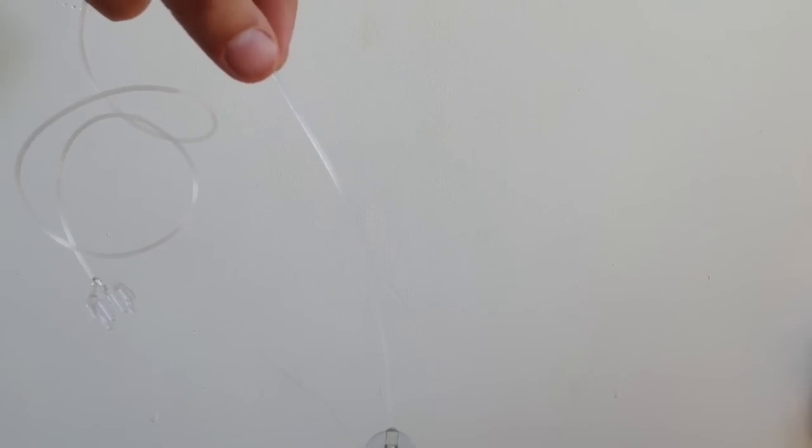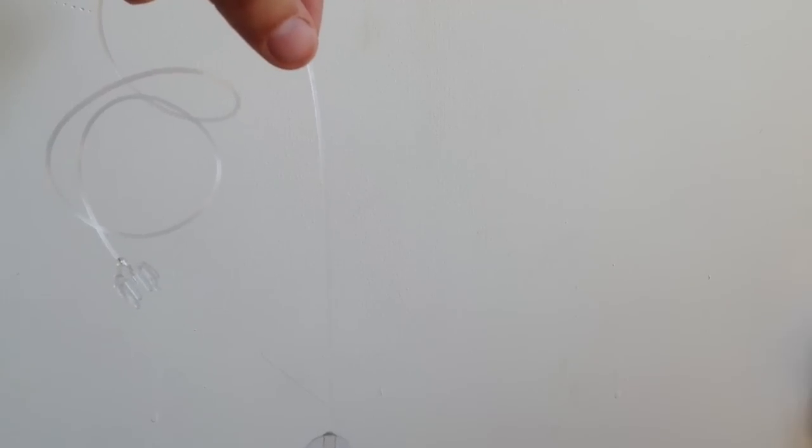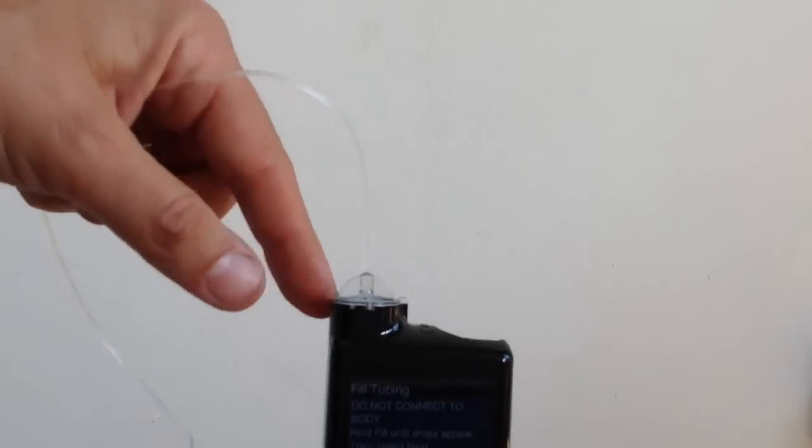Let me just see. Oh, can you see that? Okay, it's just about, there is a little bubble just where my thumb is. Can you see that there? Can I get that in focus? There, just where my thumb is, there's a trace of a little bubble. And that was in the reservoir, despite my best efforts. But I've just managed to get it into the tubing at this stage to get rid.